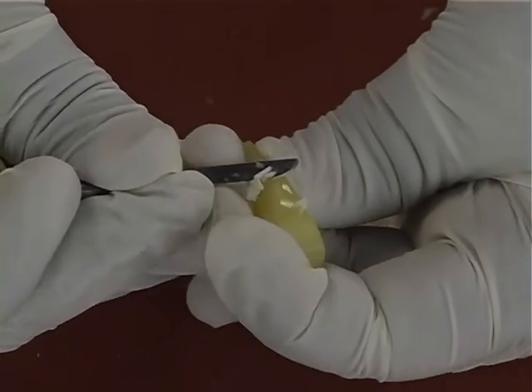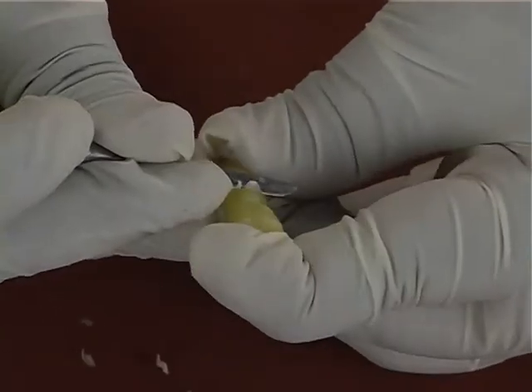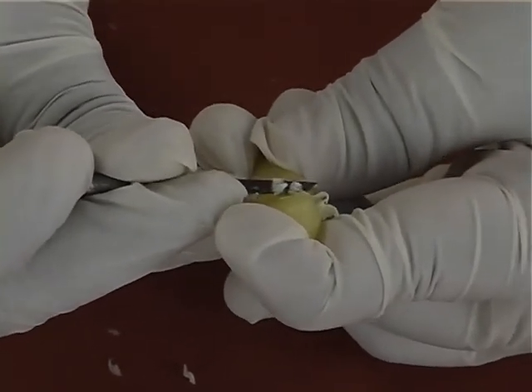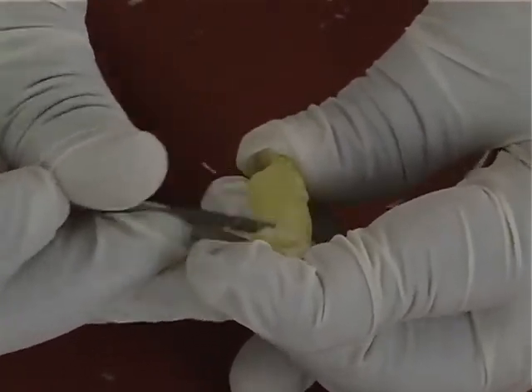Next, the cervical constriction is carved by slowly removing the wax from the root towards the marked cervical line. This is also done on all the surfaces of the carved tooth. After carving the cervical constriction, the root part should be smoothened to remove any excess elevations.